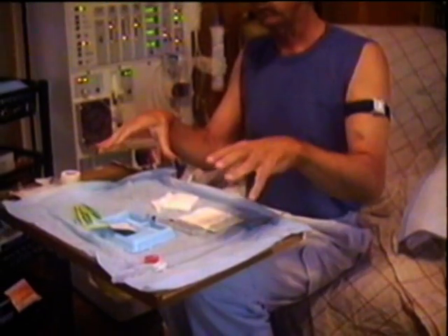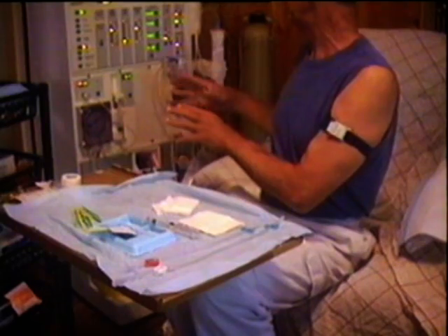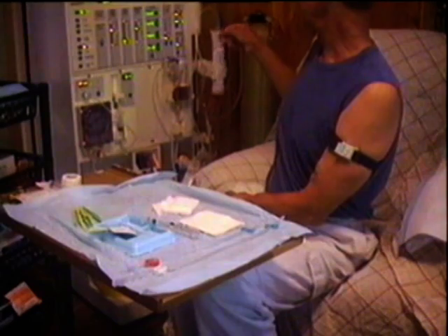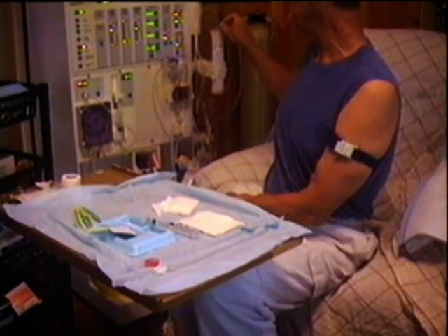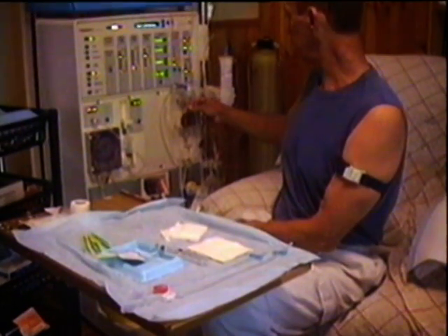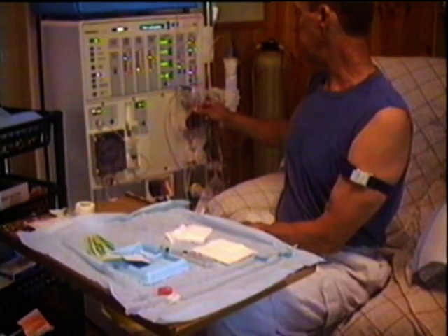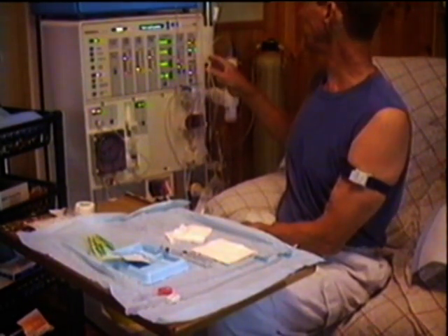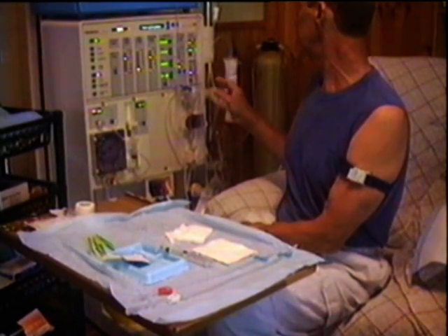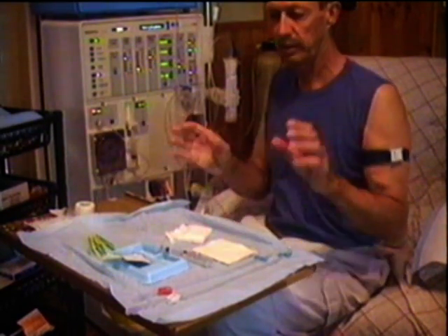These are all being prepared so that when the machine's primed for its test, I'll prime the rest of it. I'll put the saline in — the saline will run through the kidney, get all the air out of the kidney, and then through this valve here, virtually getting all the air out of the rest of the system, so that the whole priming lines are full of saline.